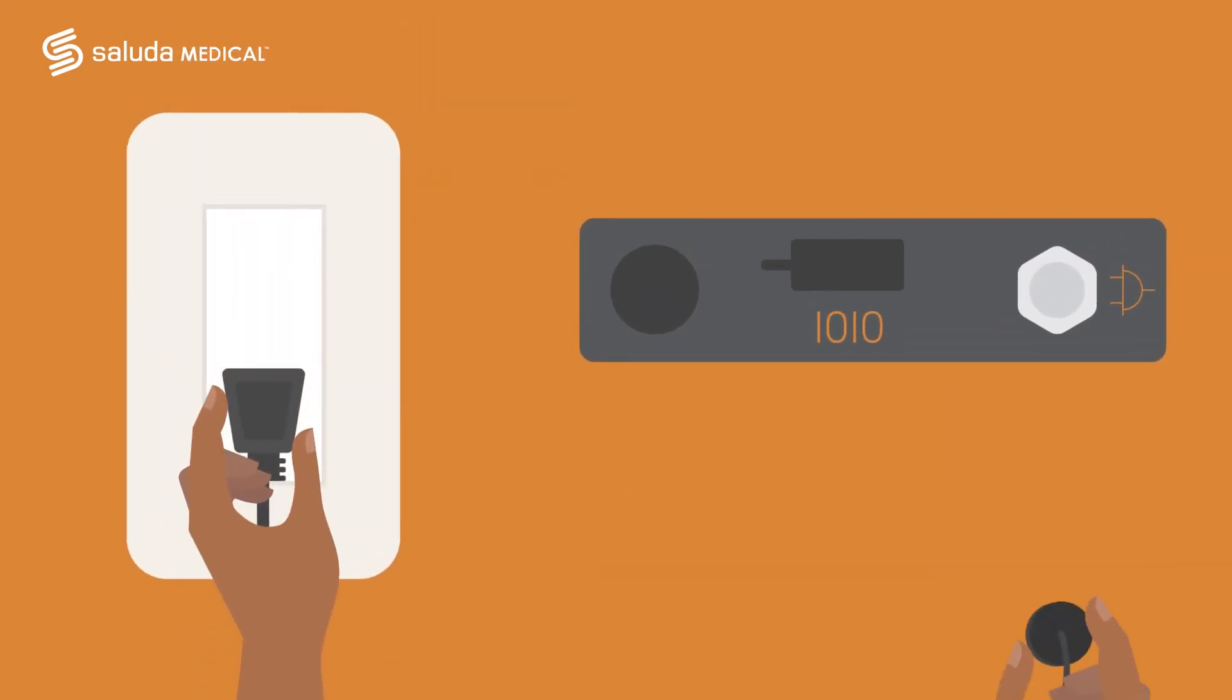You can do this by connecting the wall power to the top of your charging unit. If you choose to do so, you could leave your charger plugged into the wall whenever you aren't charging your device. Doing so will not damage the charger's battery.